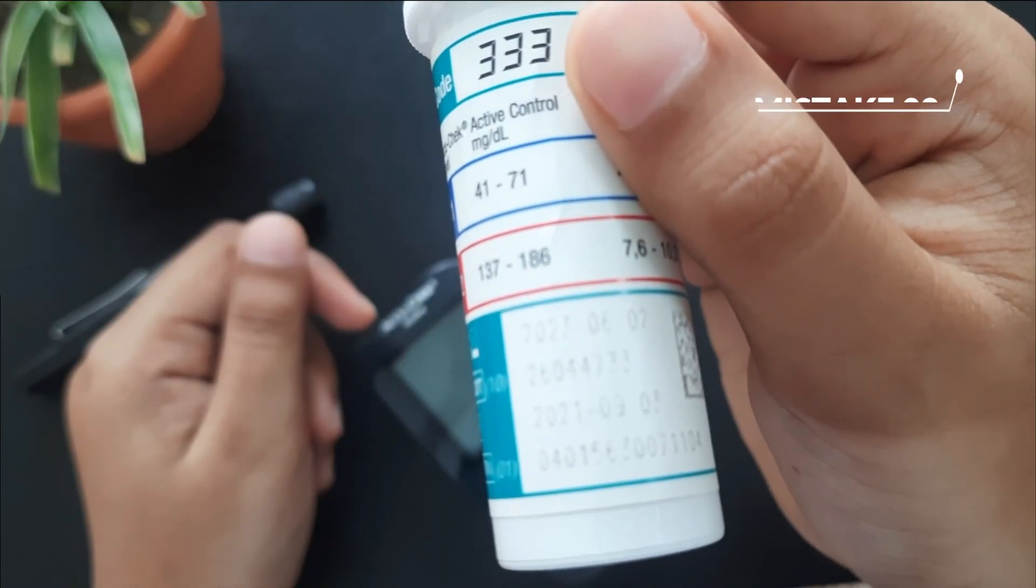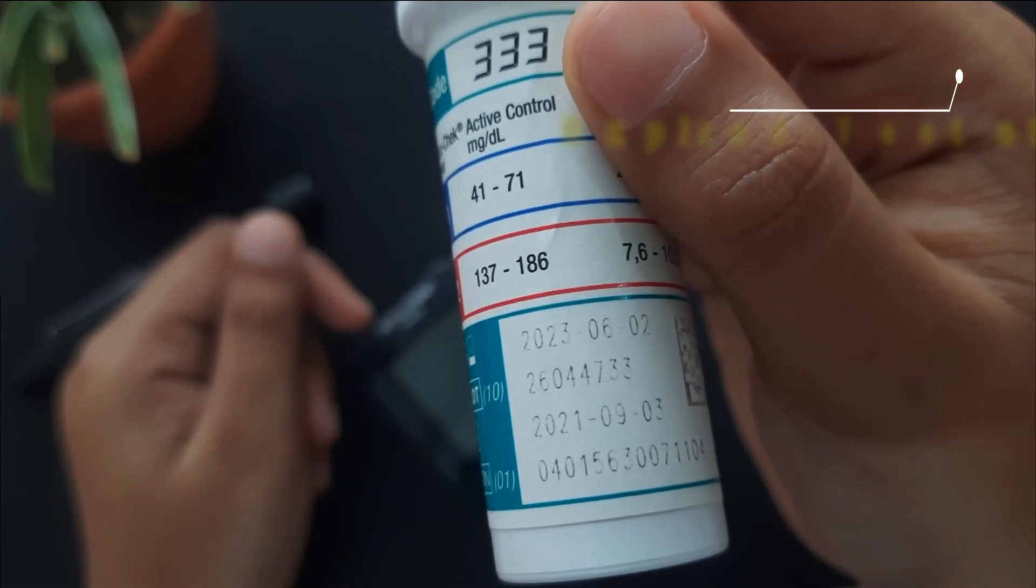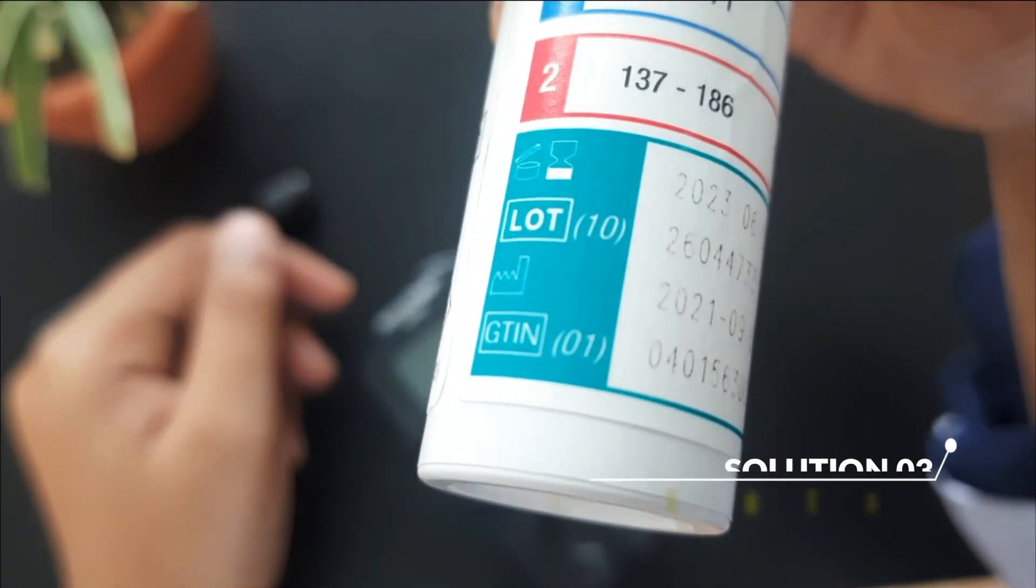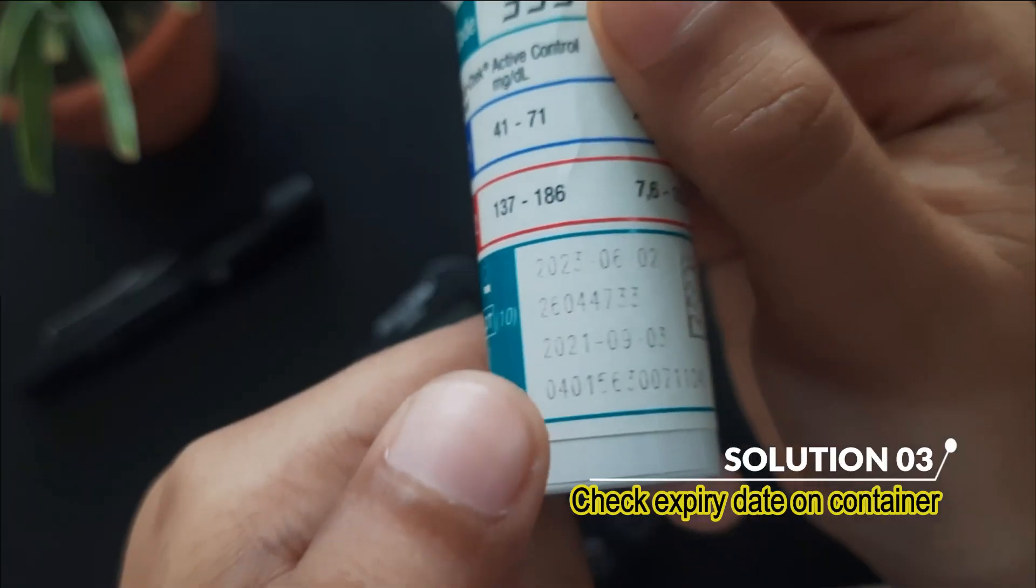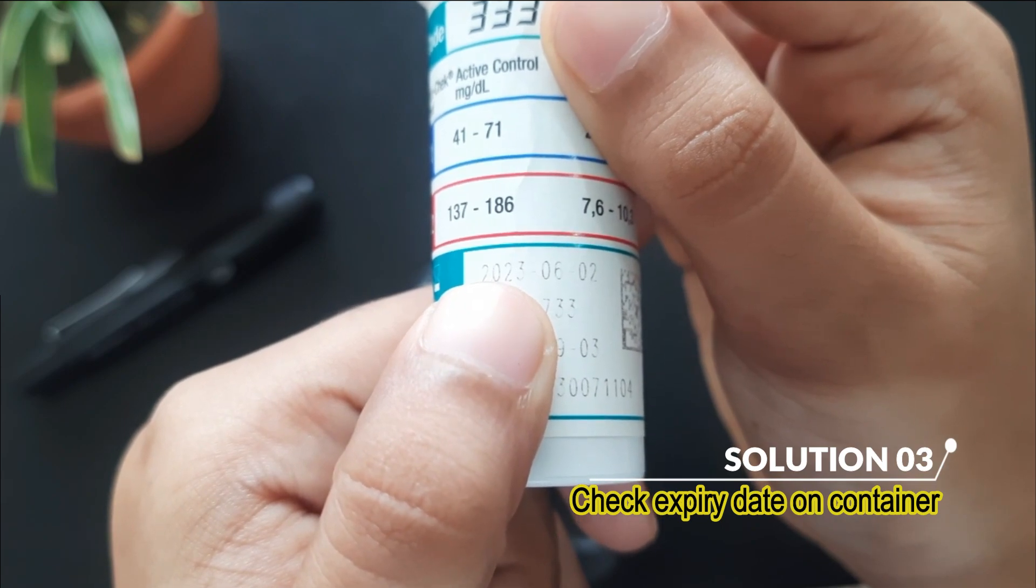Mistake 3: Using expired test strips. Solution is, check the expiration date on your test strip container. Using expired strips can lead to inaccurate readings.